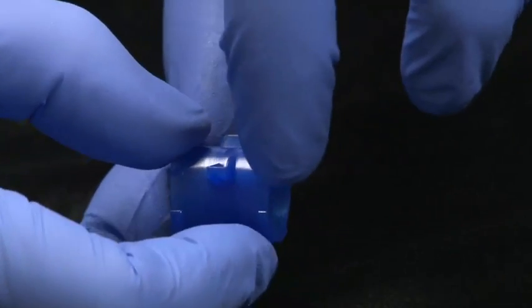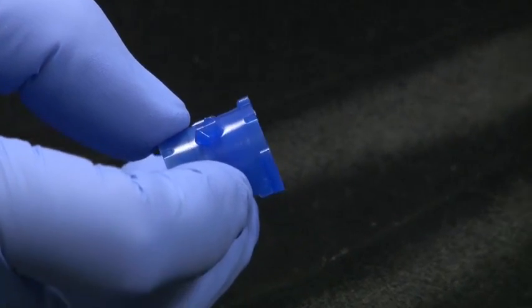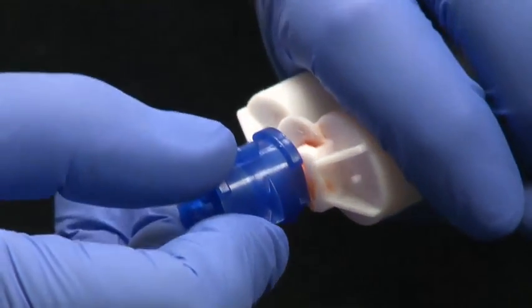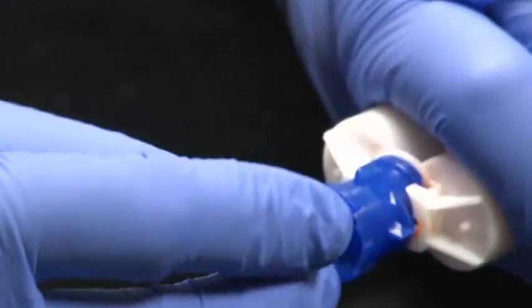And what I want is the part that's pointing up is going to go towards the one that I'm loading. So if I go ahead and see the little notch that's on the side of this, that goes into the groove on the side of our cartridge. We place this onto the cartridge where that little groove is. It just slips right on straight.